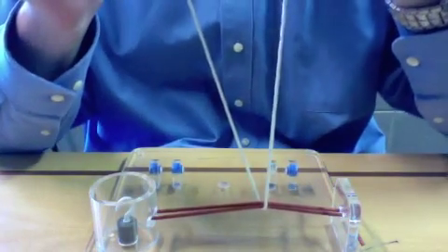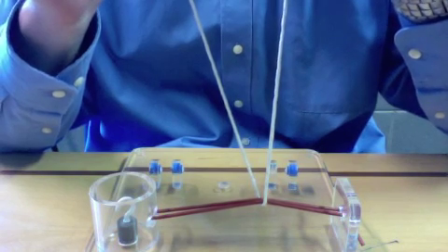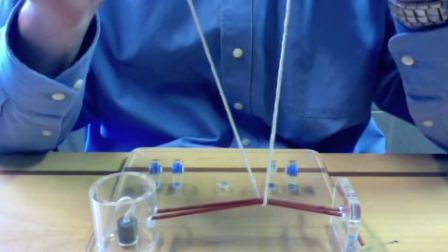It is important to keep tension on the string at all times to orientate yourself and to ensure a tight knot.